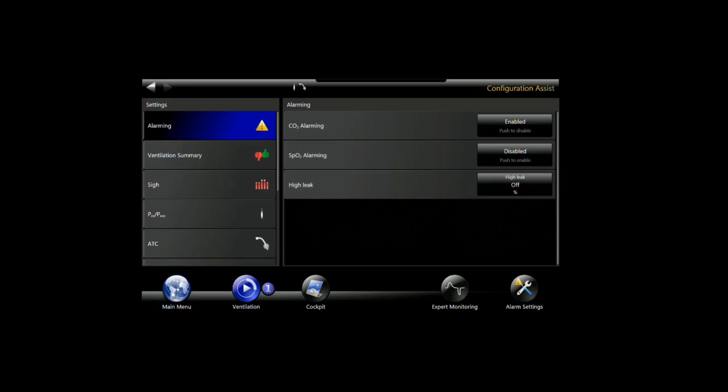That's a really important point. Now we've got the sensor zeroed, it's set up, we've got alarms enabled, and we're ready to put it into use. We've got a separate video for that.